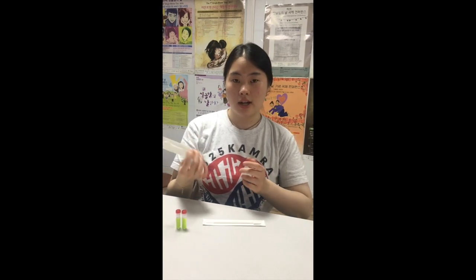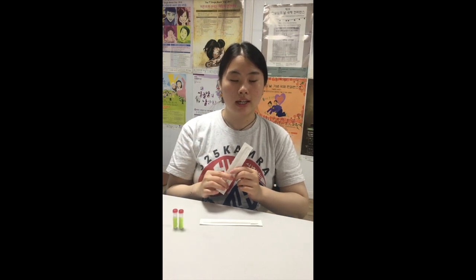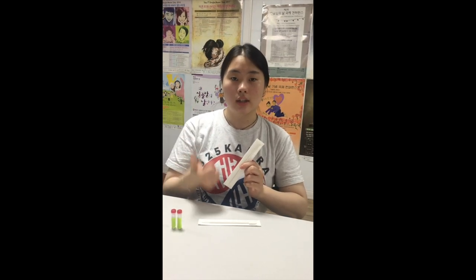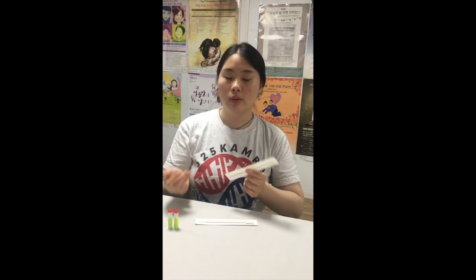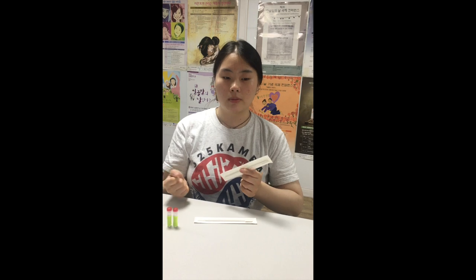So back to how to test and what to do before testing. At least 30 minutes before you test, there should be no drinking, no eating, no smoking, or brushing teeth. Preferably it would be best if you did it in the morning as soon as you woke up.